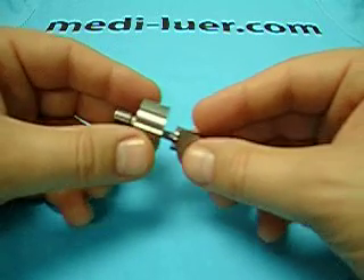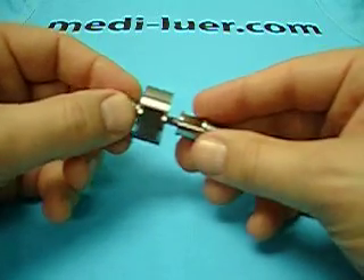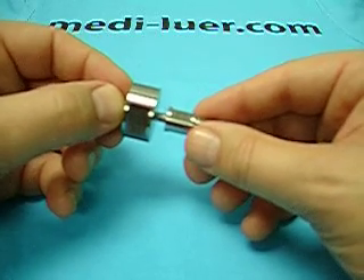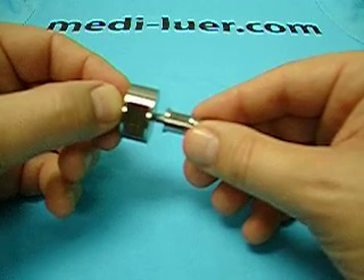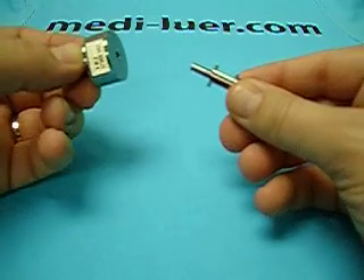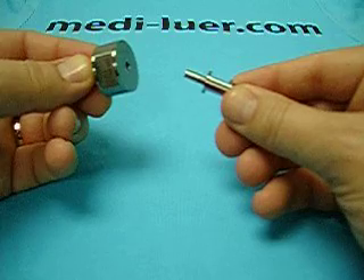If you follow that you'll be in great shape. If you put more force or more torque or exceed the 90 degrees, you're going to invalidate your test. I would recommend procuring a machine similar to the ISO 594 test assembly machine to put your test piece in assembly with your test reference fitting.